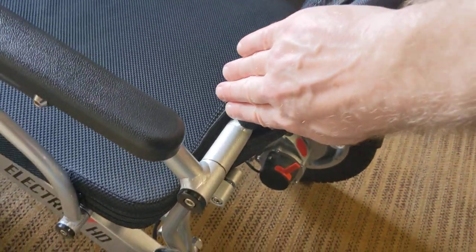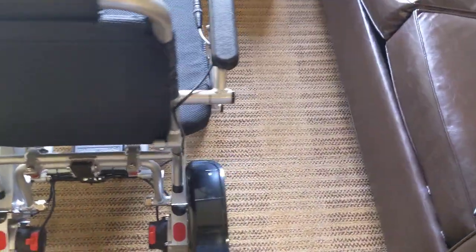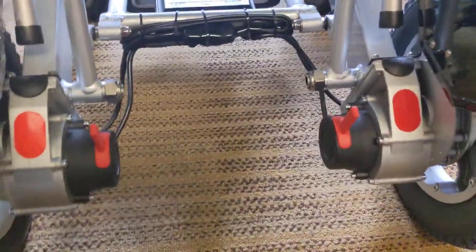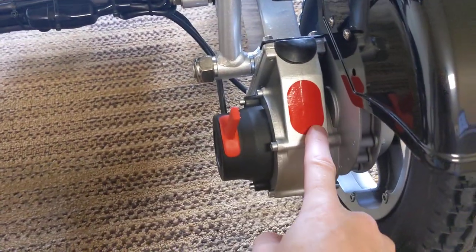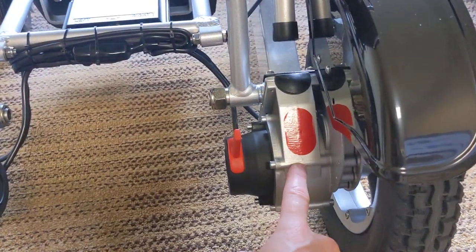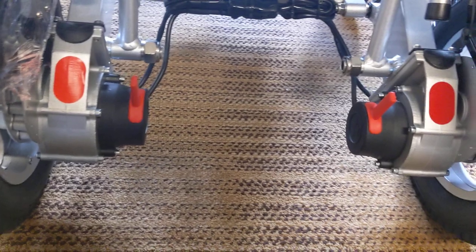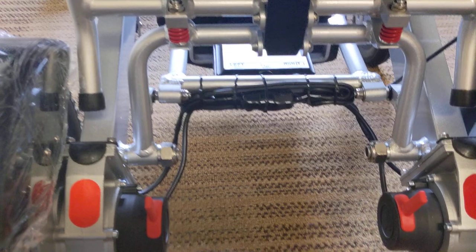The chair is ergonomically designed. It's not an adjustable recliner like the Falcon is, but it does slightly recline and it does have the rear fenders — a great feature people really like. This chair has two 250-watt brushless hub motors. Brushless is very important because you're not operating in an environment where there's friction, so it's not inherently built to break. Other chairs on the market use brushed motors, and give those a good couple of years — you'll most likely be replacing the motors.